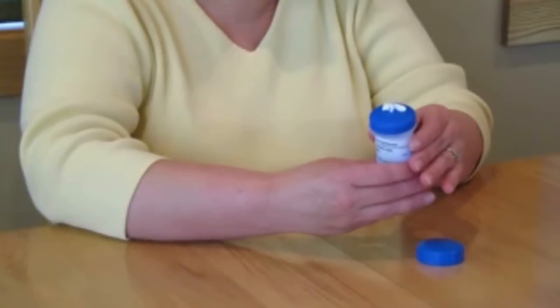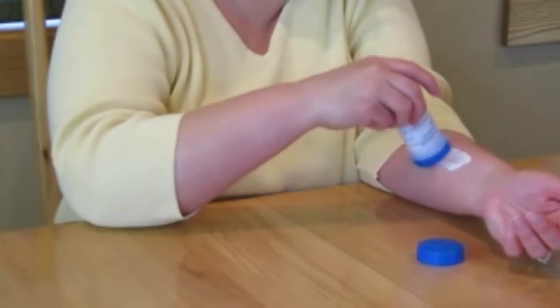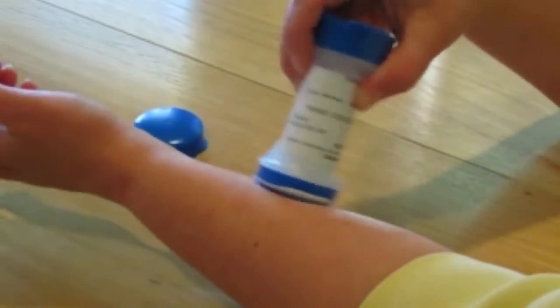Apply the treatment by rubbing the cream, which is now on the top of the applicator pad, to the area of skin as directed. The area to apply the medication may vary. Be sure to follow your prescriber's specific directions.